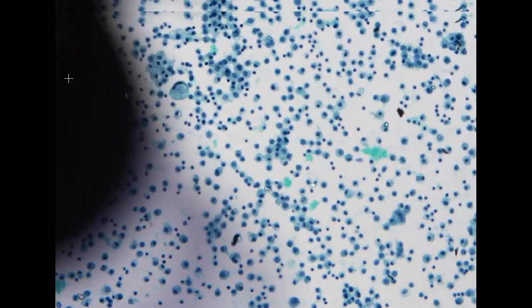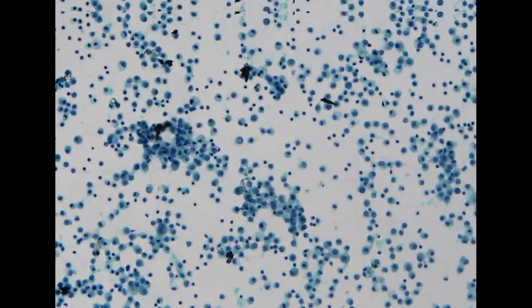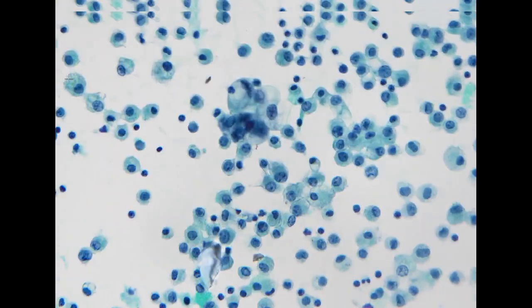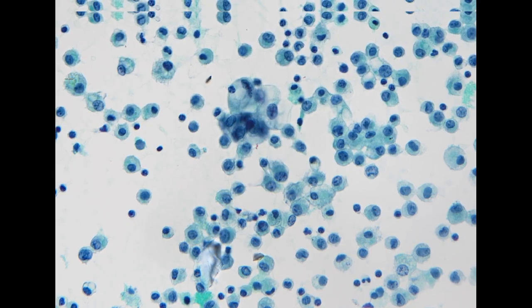We've seen these types of specimens occasionally, which makes me wonder whether hysteroscopy is actually a very good examination for patients, because not uncommonly, we will see something like this. The other possibility is that during the operation, the surgeon manipulates the uterus and might artificially push the tumor cells outside of the endometrial cavity. But this is a relatively uncommon situation. So I personally don't really like the procedure of hysteroscopy.